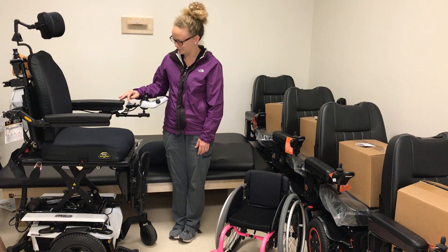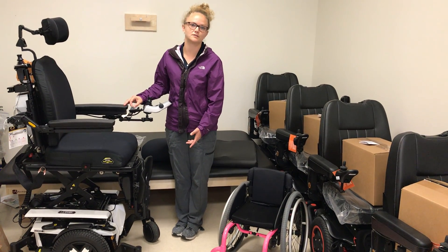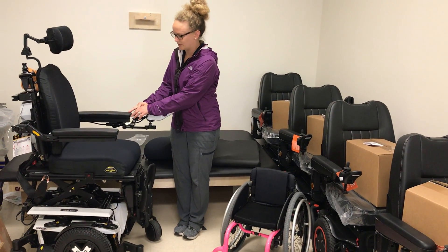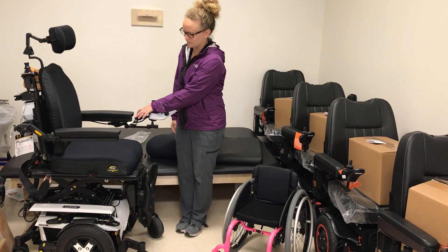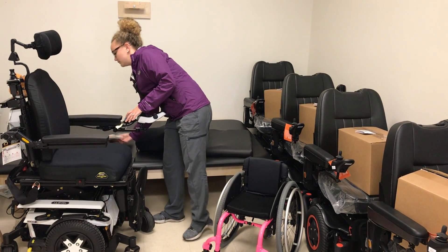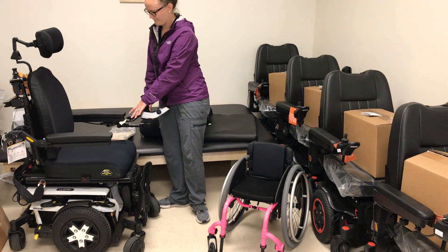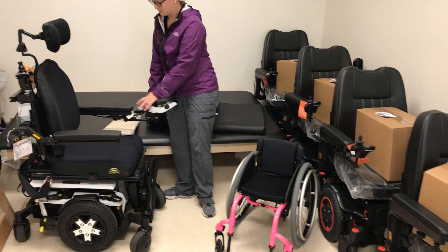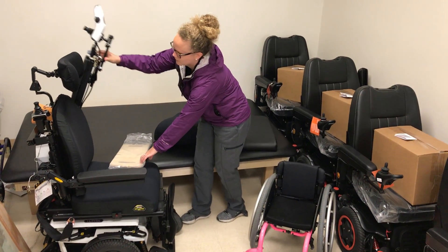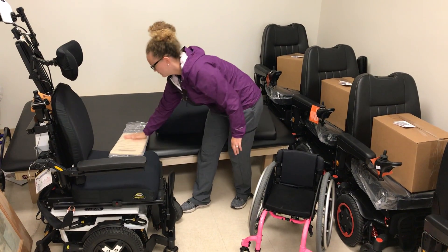And then we'll go all the way down. This would be helpful for transferring onto different surfaces, such as this mat. It's much easier to transfer from this height rather than something higher. We're all the way down, and this makes it an easier sliding transfer for the user from here to here.